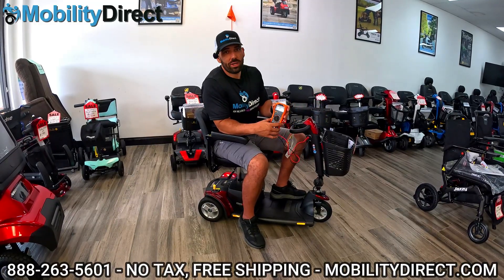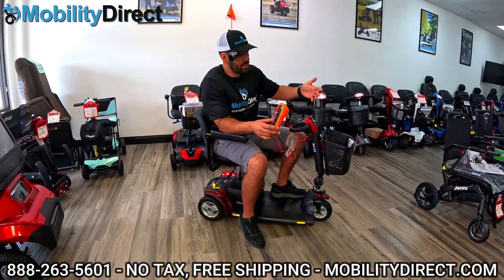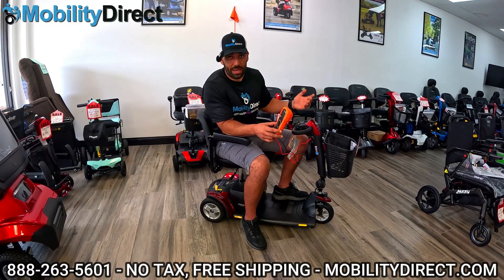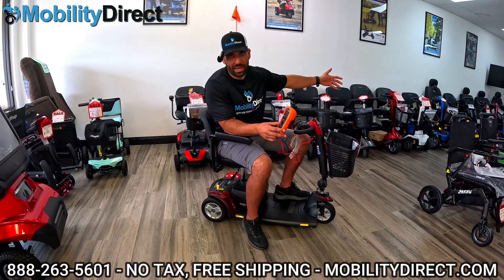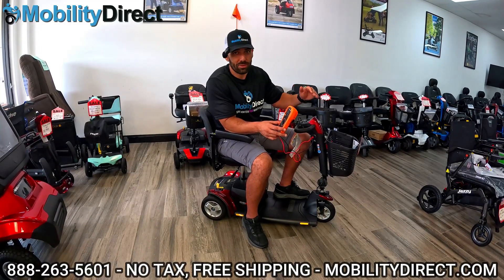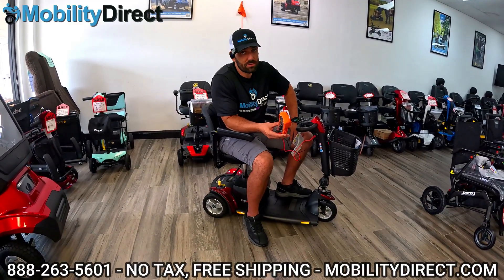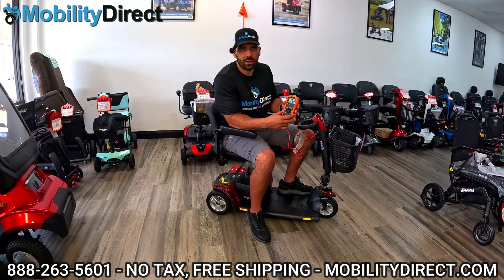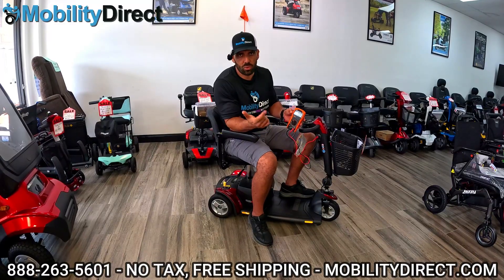That's what happens over time with any batteries — the older they are, the ability to hold a charge starts to rapidly degrade. With lead acid batteries, that window is about two years and then you need to replace them. When you first get a scooter, let's say the manufacturer rating is 10 miles on a full charge. After year one, you may only get six miles. After two years, you may only get two or three miles. Lithium batteries are more expensive, a lot lighter, and they last three to five years — sometimes longer if you take care of them. This process works whether it's lithium batteries or lead acid batteries.